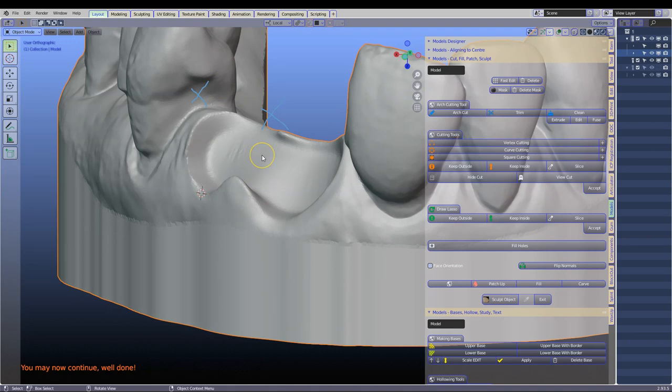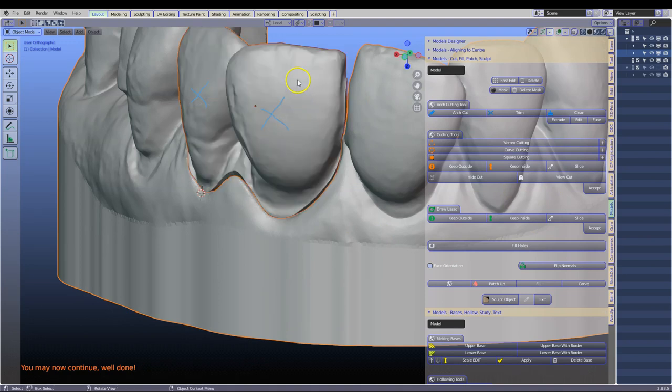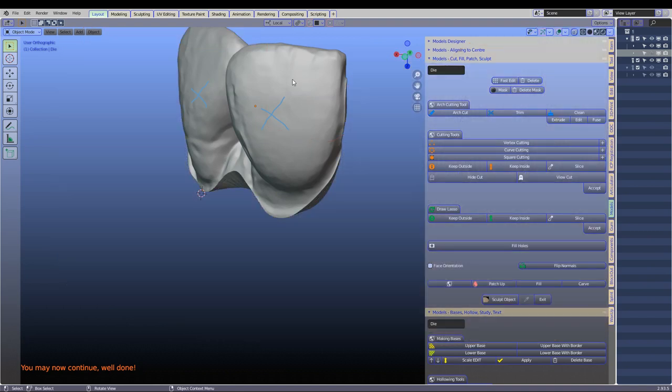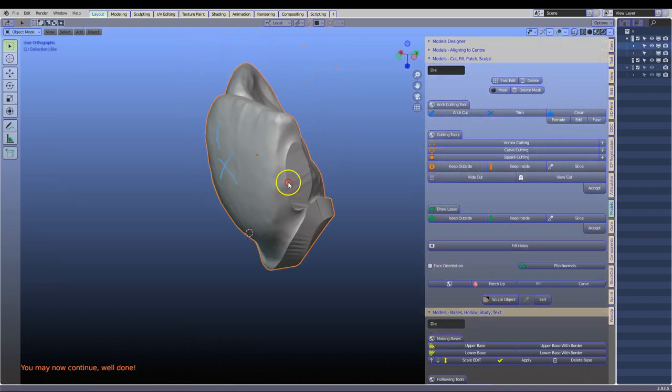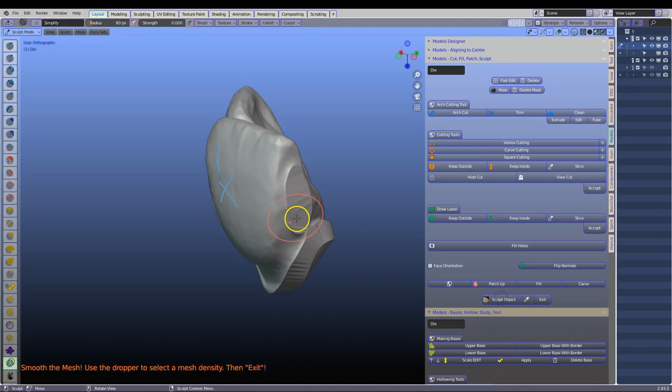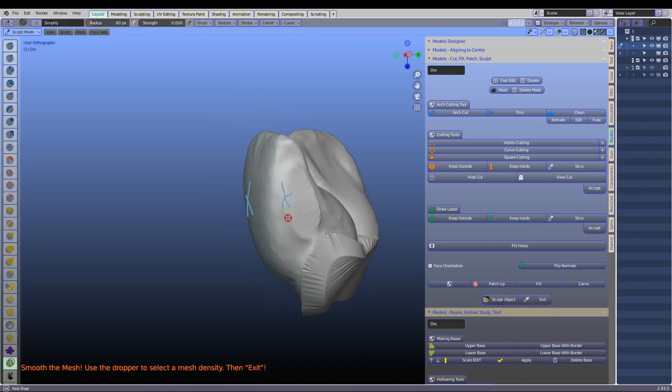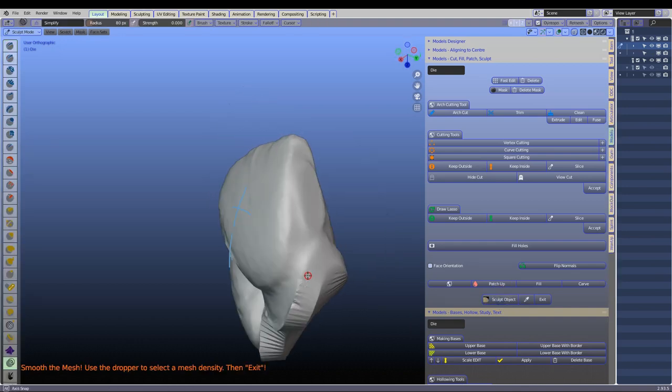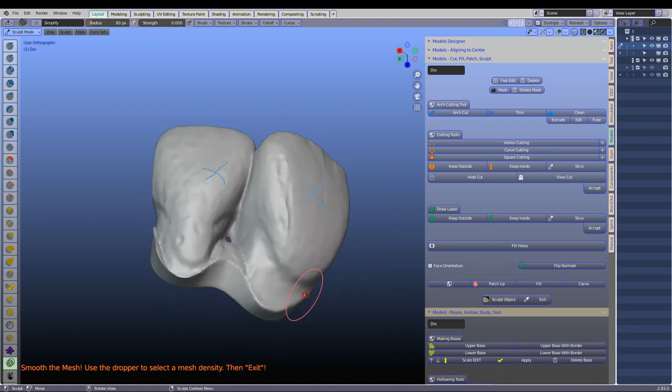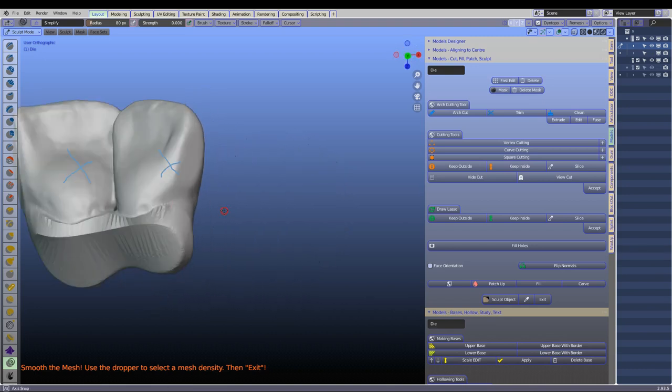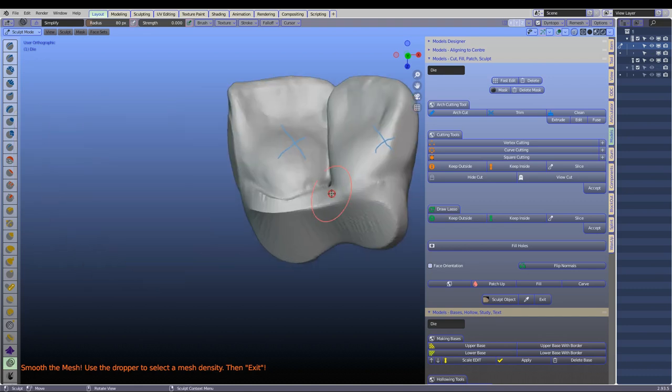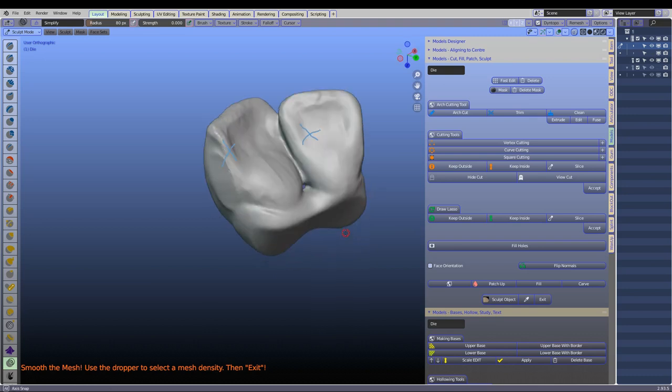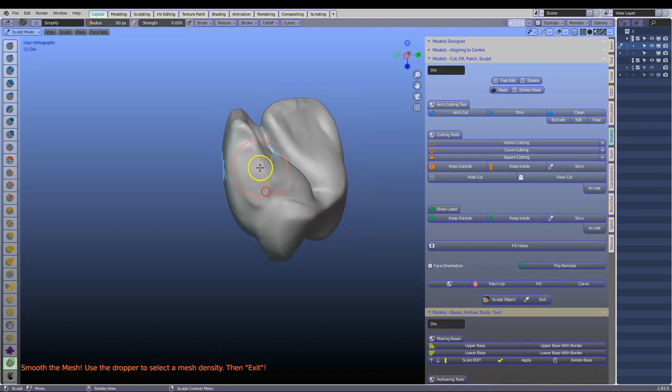Once it is done we are going to exit. Alt H to unhide. I am going to select it. Ctrl I to select the inverse. H to hide. Take this. Do the same thing. Sculpt. Then we can get a good mesh structure. Now I have noticed there is a little bit of a gap in there. There is like a little hole which we are going to fill up as well. But we can fill that up a little bit later. So here I have got a nice tooth mesh.